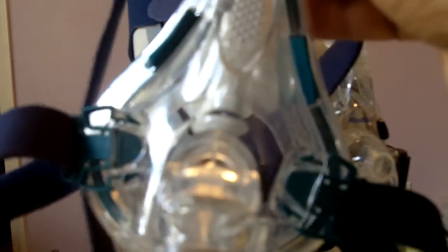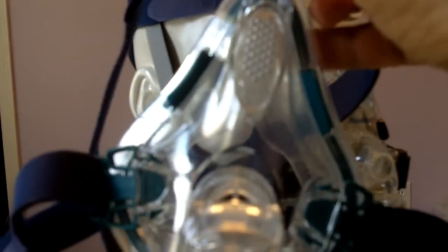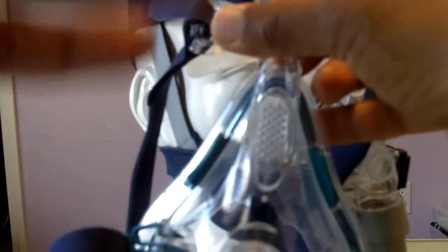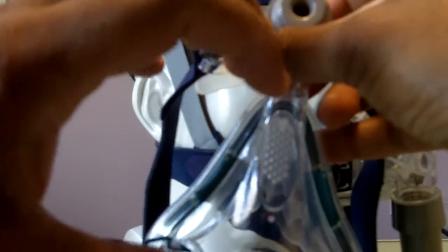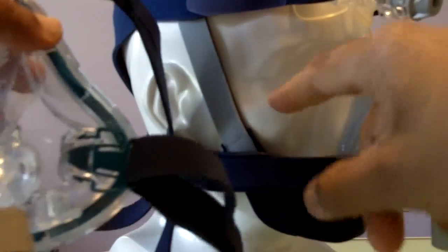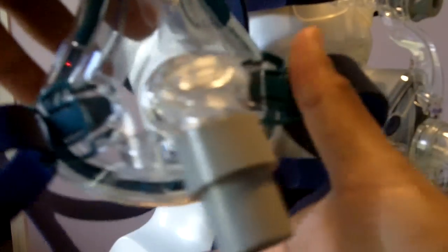This is for somebody who opens their mouth when they fall asleep. What happens is because your mouth opens up slightly and your CPAP or BiPAP pressure is so strong, your mouth just puffs open so wide it tends to hurt the jaw. You use the chin strap to control how wide your mouth opens—you can let it open this much or this much, but not this wide.